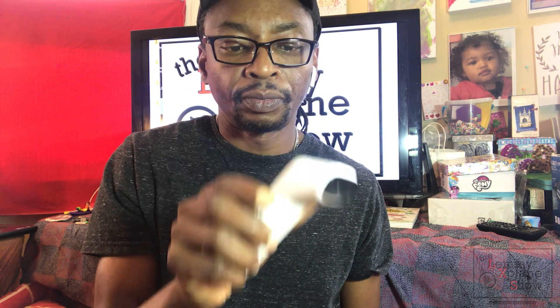We're going to turn it on now — batteries are in. There we go! It is backlit, which is fantastic. Make sure to press the mode button before drawing conclusions. On the modes, you have different options: the baby mode, the forehead mode, and a temperature mode in case you want to take the temperature of a liquid.